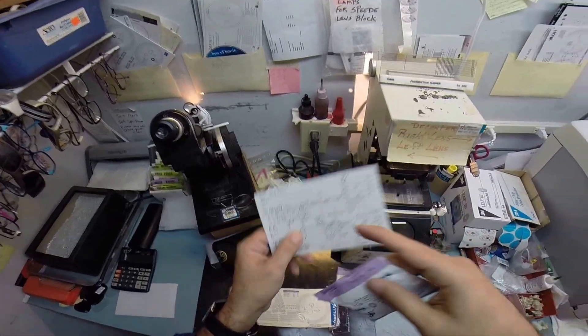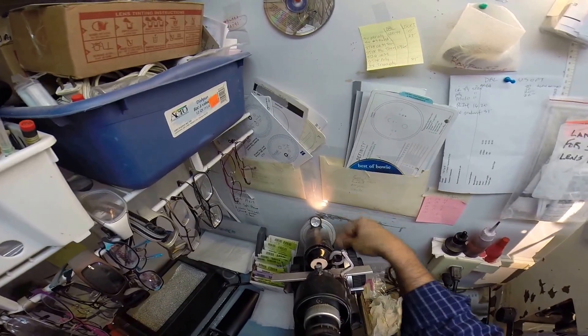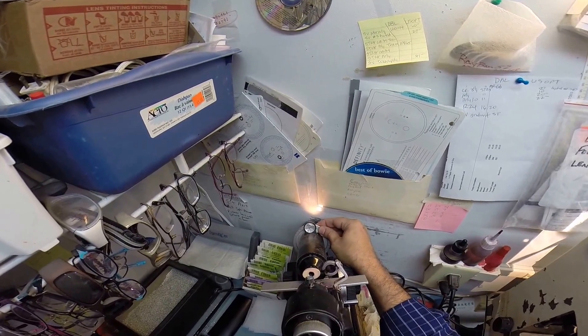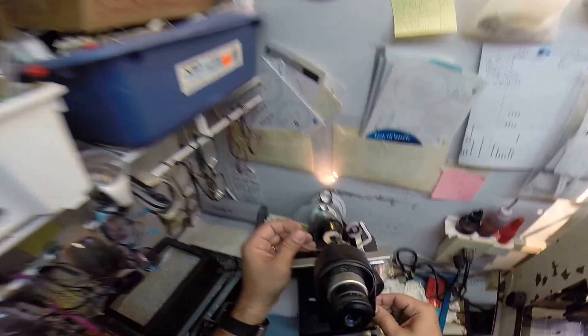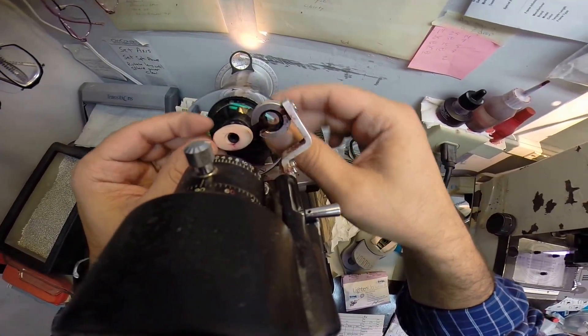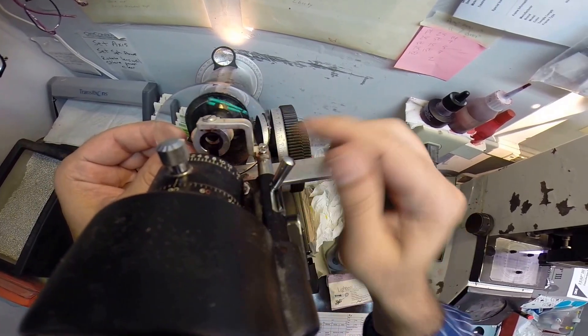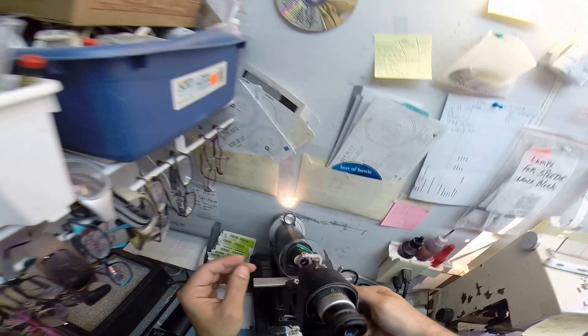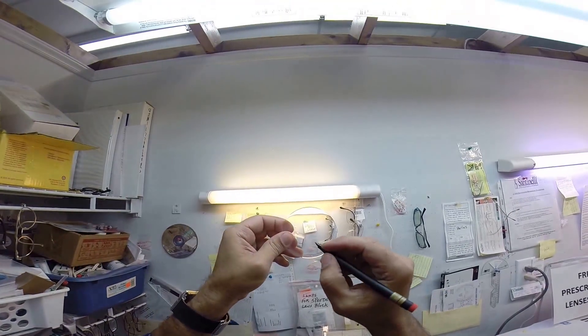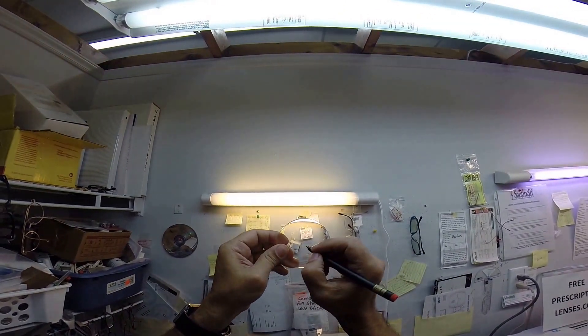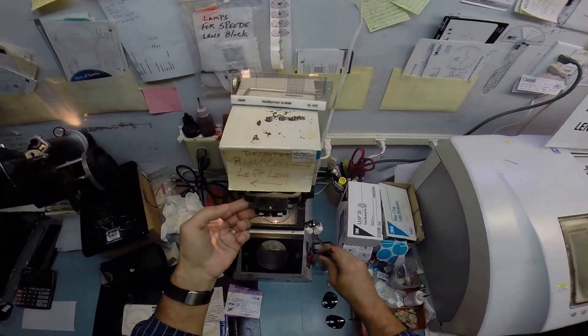Let me go ahead and get your lenses. Minus 4, minus 50 at 93 is your right eye. I'm going to take it out of its protective sleeve. I'm going to spin the axis wheel on my Marco 101 lensometer to 93. I'm going to set the power drum at minus 4. I'm going to put your lens in, find the sphere power where it comes in clearly, locate the optical center of the lens, clamp it down, check your astigmatism correction, and then I'm going to put three dots on your lenses which are virtually impossible for you to see on this camera. So I'm going to use my pen to darken those. As long as I can see them, we're good. And that is the right lens, so I'm putting an R on there.